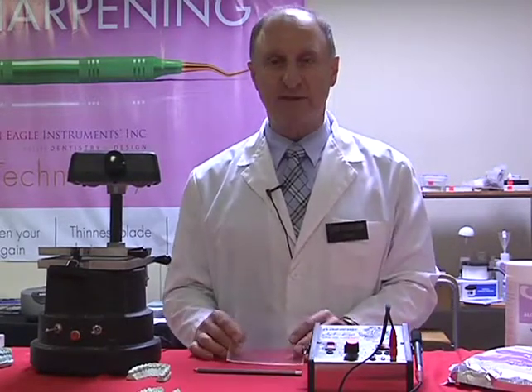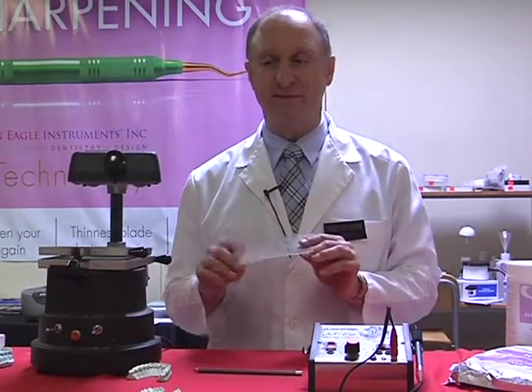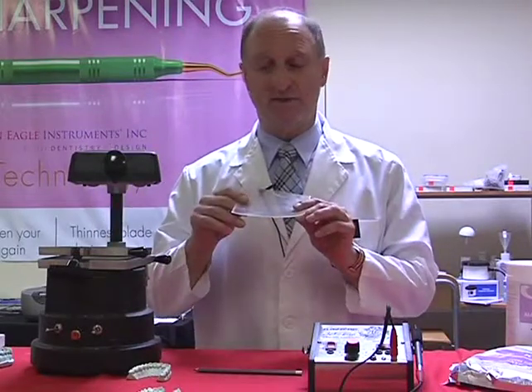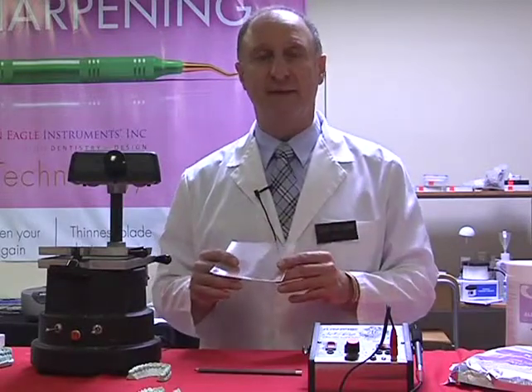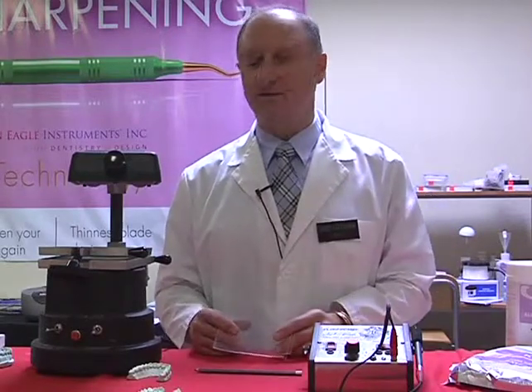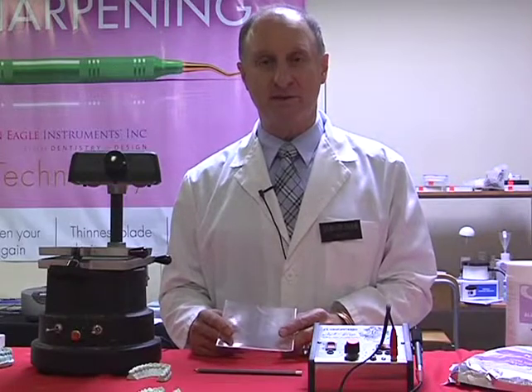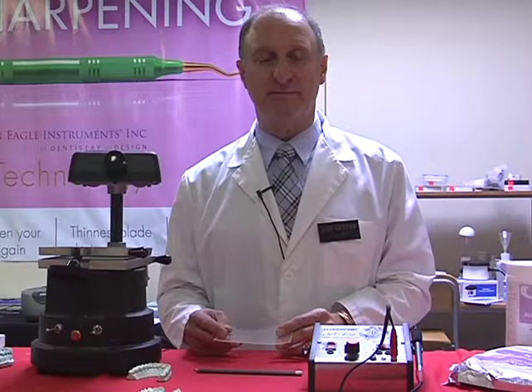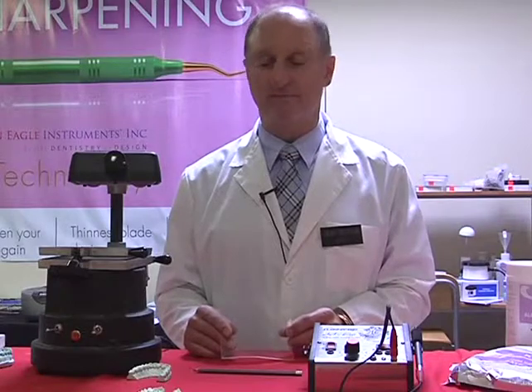We're going to use these materials again in the case of thermoforming, where we heat the materials. So in this case, I'm working with a heater that's on this machine that heats up the sheet of material. And in this case, it's a vacuum former, so it actually sucks it down over the model. In other cases, they use pressure forming, where they push it down. So something such as the variety of systems out there that are used in pressure forming. Druformat is one of the different products that are out there. And in this case, I'm using a product from the Keystone industry.